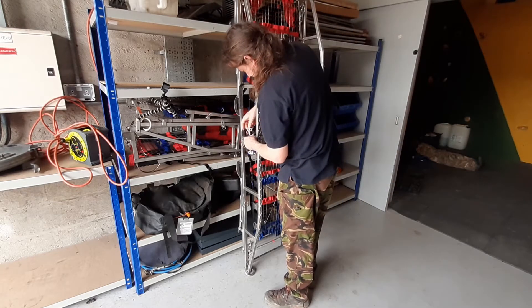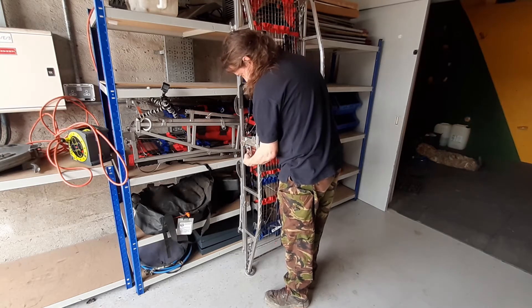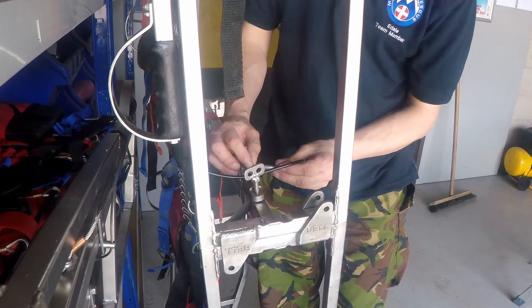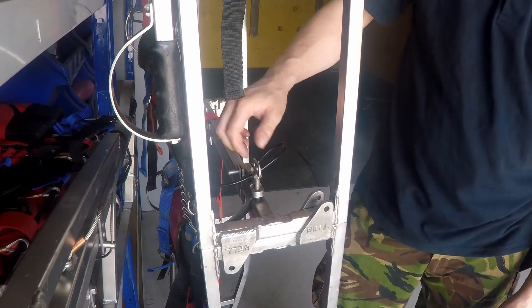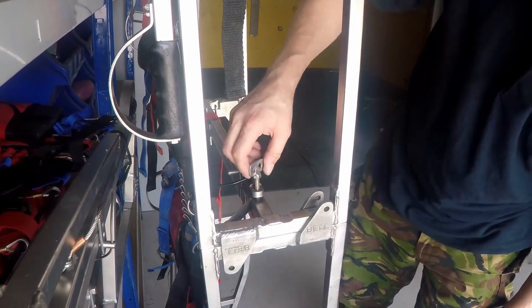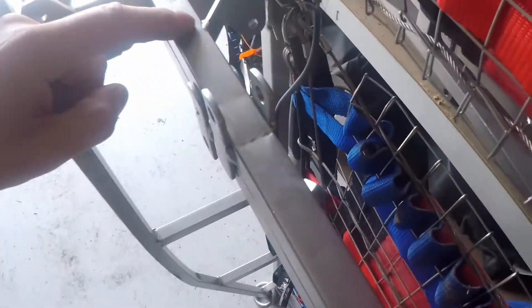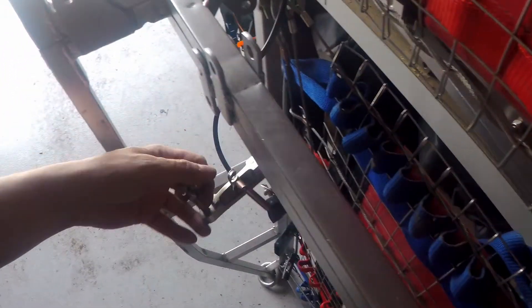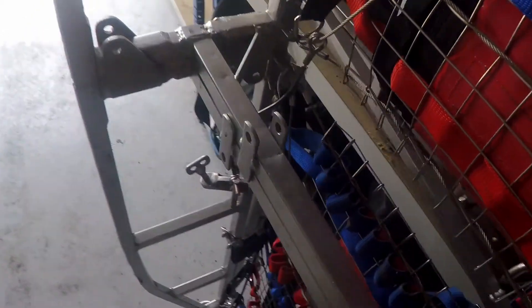While we're here - when you're putting it away, put the pin in. This does not need to be cranked up tight - finger tight will do, the pin's not going to come out. The reason I say that: if you look carefully, you can see little dents here where the screw has been cranked down hard and it's kind of pushing in and deforming the material. So you don't need to do it up that tight - just finger tight.